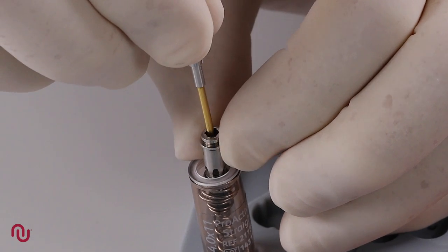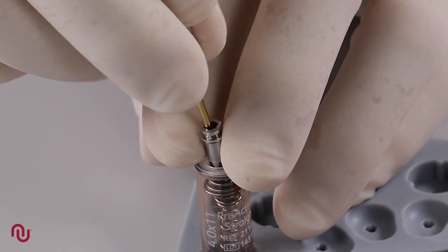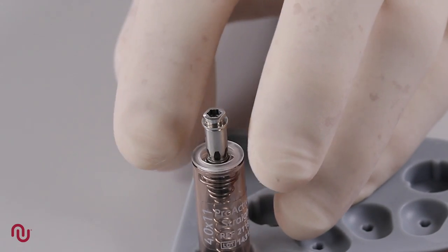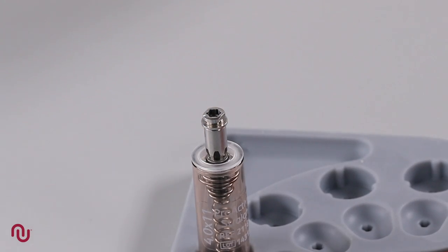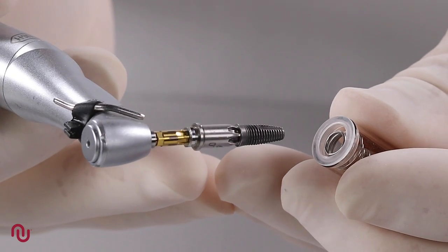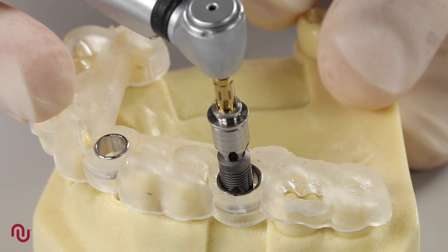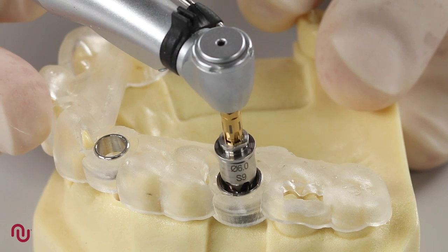After site preparation, the implant mount for the corresponding implant sleeve is chosen and attached with the pre-assembled screw to the implant while the implant remains in the vial. Pick up the implant mount with an implant inserter and place the implant through the guide and place to hub.